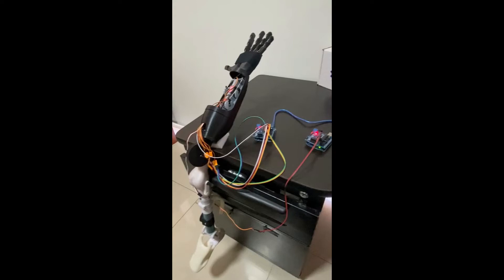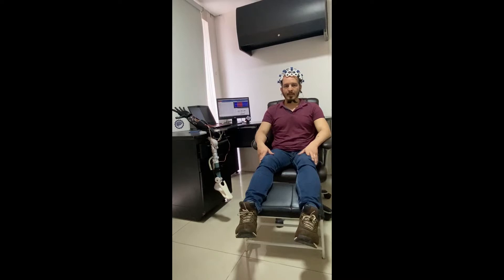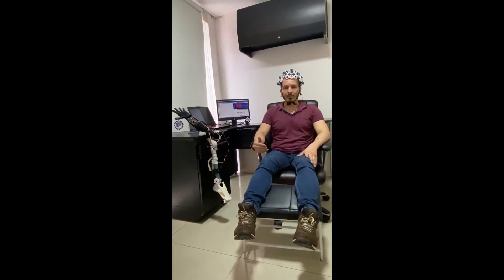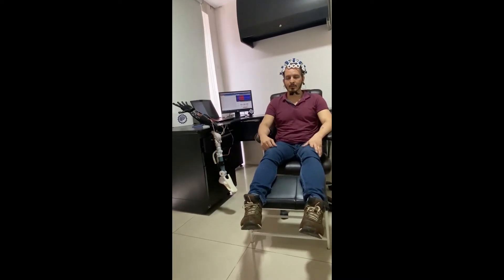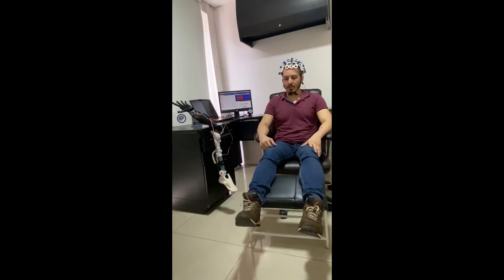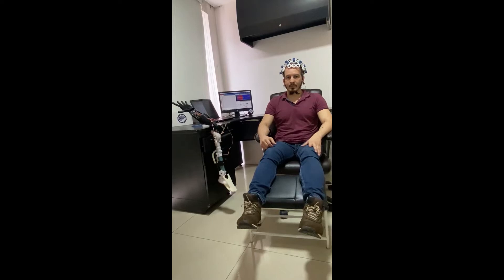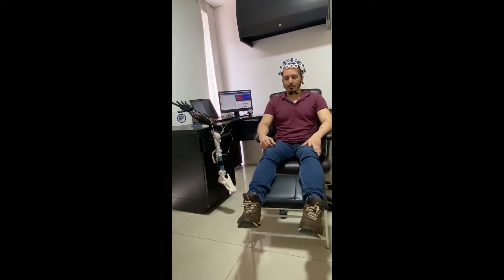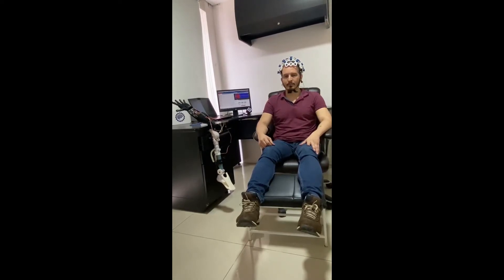Now we will demonstrate the classifier. In the first demonstration, we will control the prosthetic leg. I did not participate as a volunteer for the data learning. I can control the prosthetic leg by visualizing someone else moving the leg — this is due to mirror neurons. I can also use my own leg as a stimulus. I raise the leg, then lower it. I can also imagine myself in the first person moving or lowering the leg.